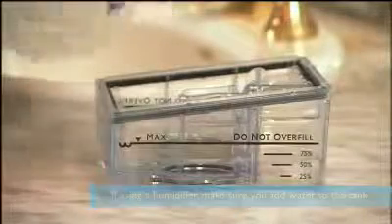Follow the instructions in the setup portion of this program to prepare your device for use. If you have a humidifier, remember to make sure that there is water in its water tank before you turn on the device.